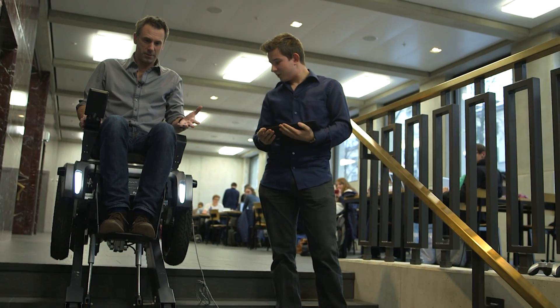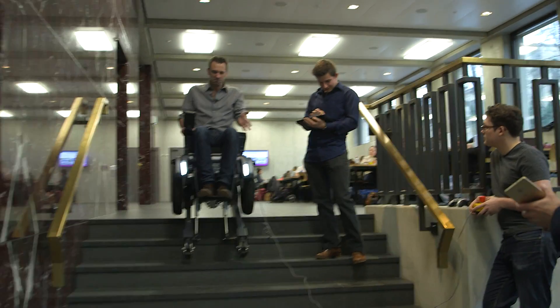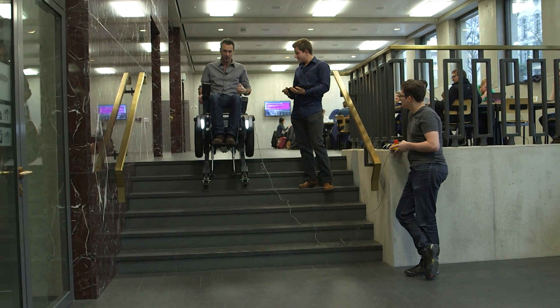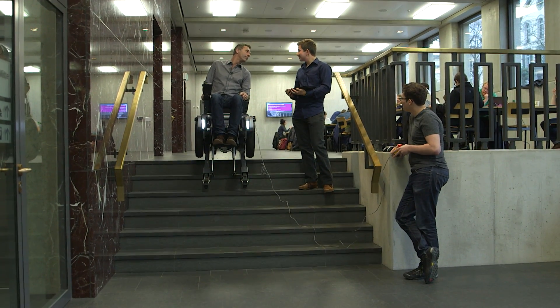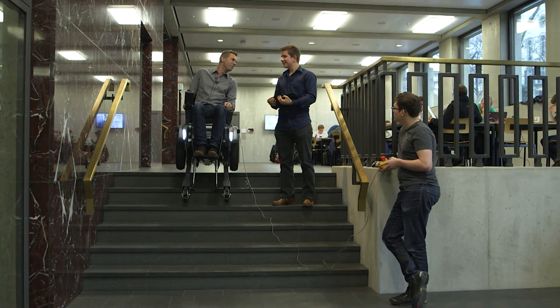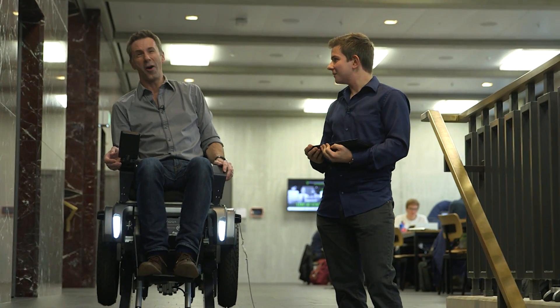If you shut it down, is it going to collapse? No. We can drive down again? No. I do not like the look of going down. In my mind right now, the only thing I'm thinking about is if this tumbles forward, what do I do? Do I leap? Do I lean back? What would you advise? It doesn't tumble forward. The motors... You don't have to be scared. We can always drive back down.